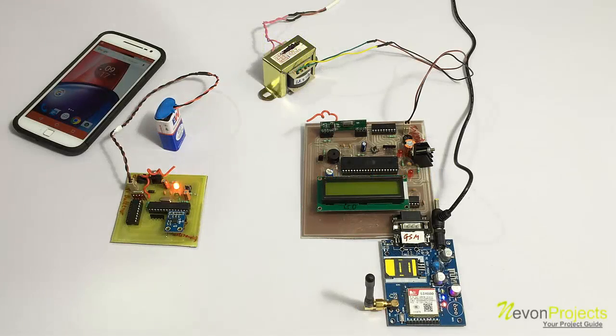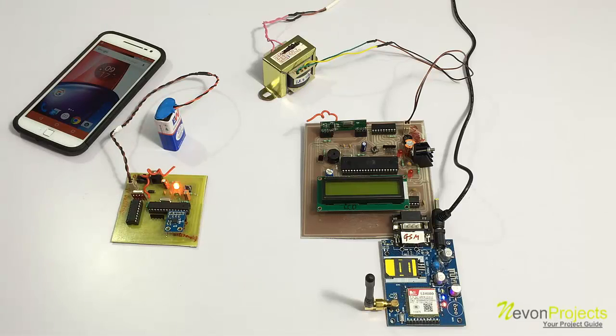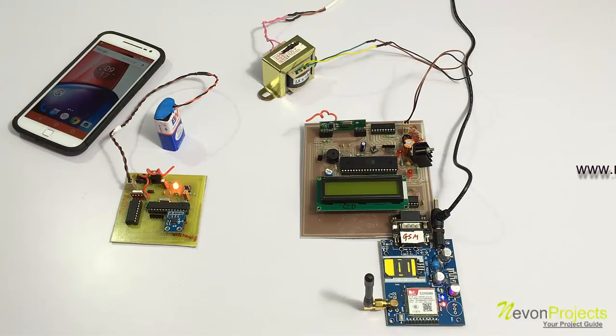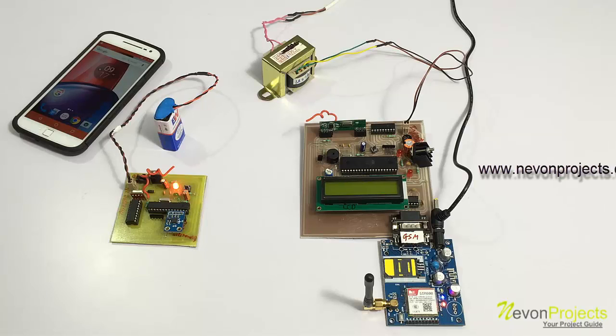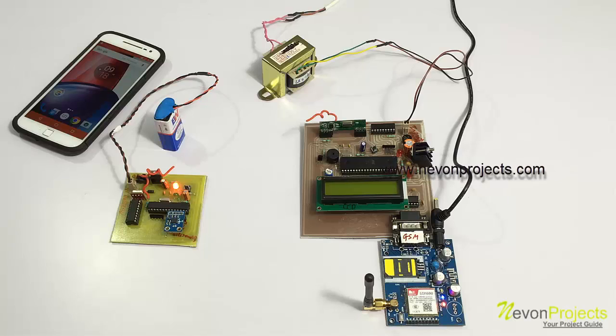Hi, this is a demonstration of the automated paralysis patient care system. Paralysis patients are those patients who are unable to make full body movements or hand movements, and thus it is not easy for them to convey commands or their messages.